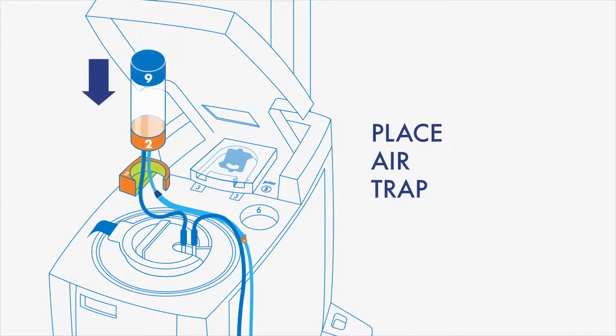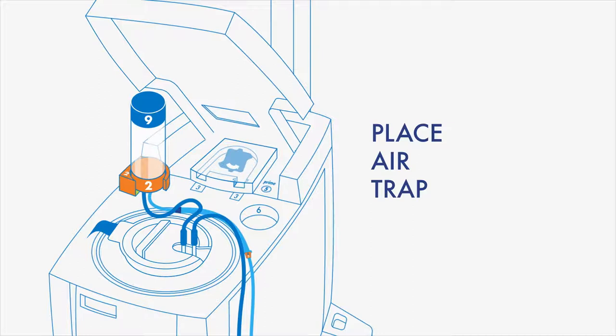Place the air trap in the orange stand with the orange end down. Orange number 2 to orange number 2.